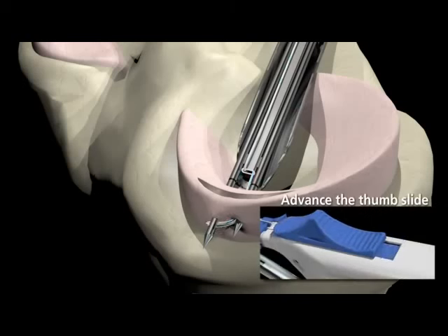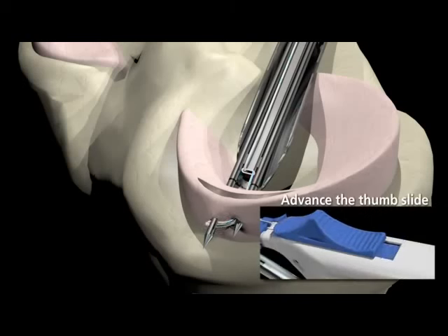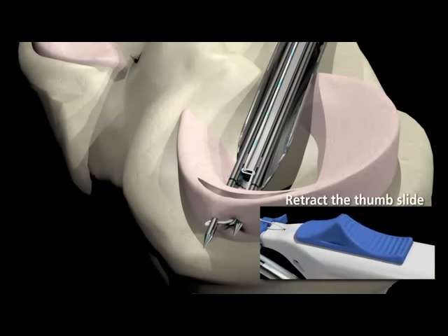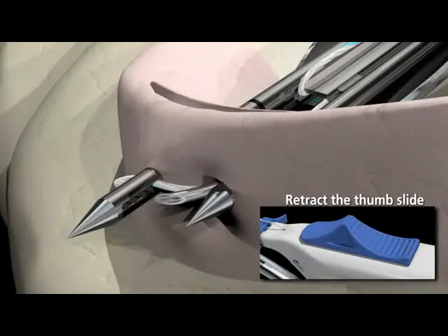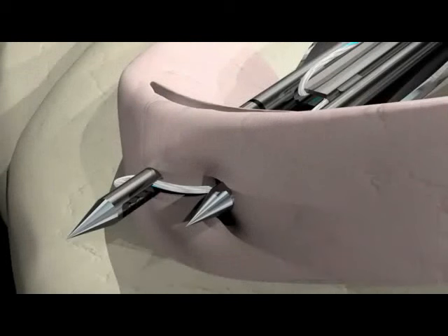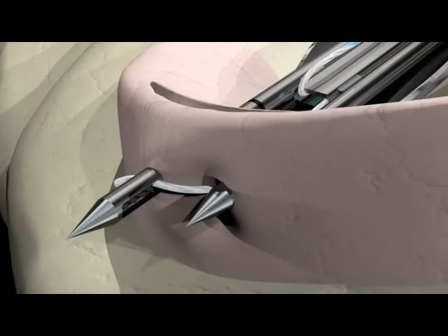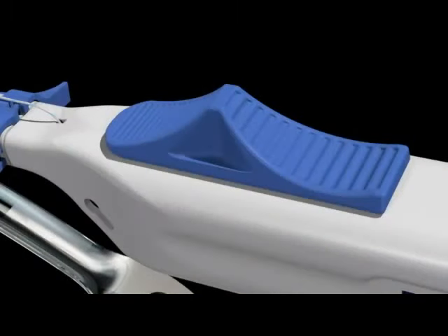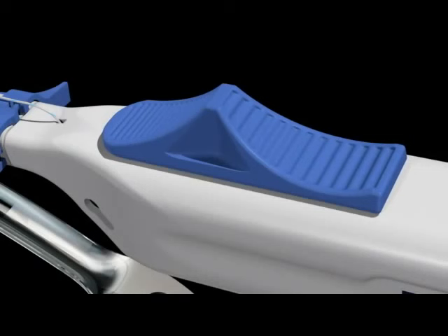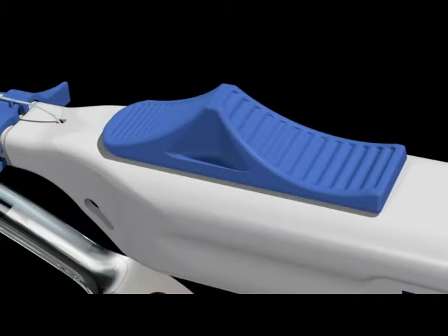Advance the thumb slide to the full extent of its travel. After the thumb slide is advanced forward maximally, it can be fully retracted. This will retract the passing wire and capture the suture in the long needle as it is passed from the short needle. Note: at this point, the thumb slide should be locked out and not able to advance forward. To check, make sure you are unable to advance the thumb slide again.